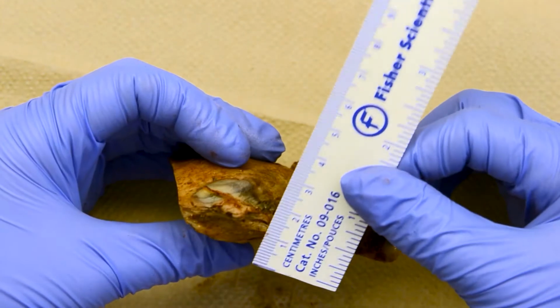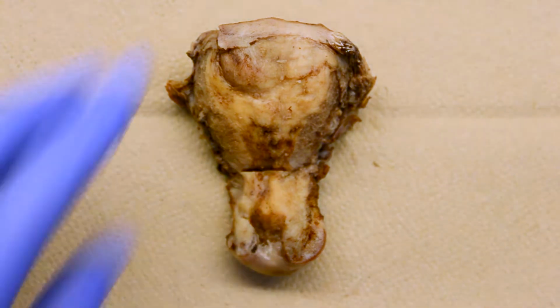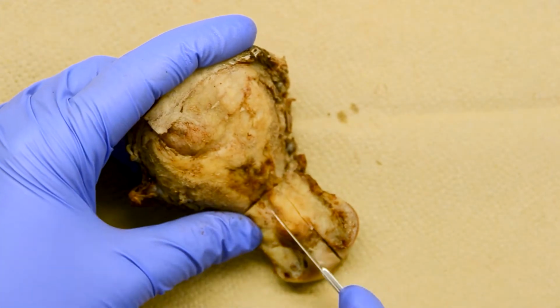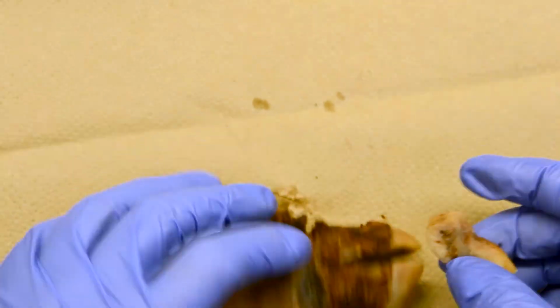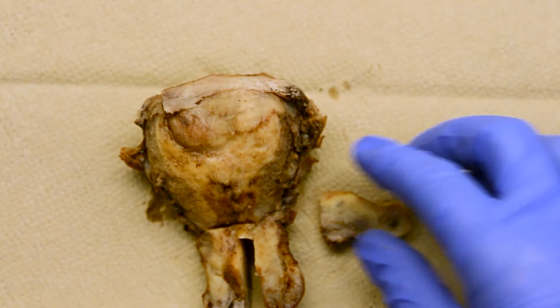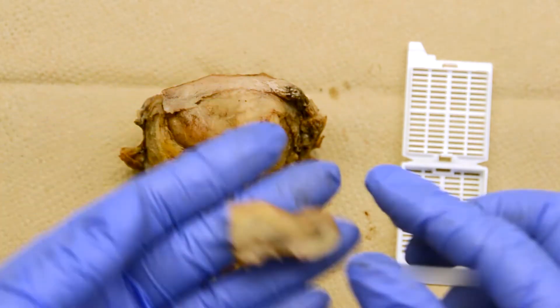Once we do our full thickness sections, we'll also be measuring the thickness of the endometrium and the thickness of the myometrium. The first section that I'm going to take while grossing this uterus is going to be my cervical section. In this section, I'm trying to demonstrate the squamous-columnar junction and showing a longitudinal section of cervix. So that'll be my first cassette, my anterior cervical section.